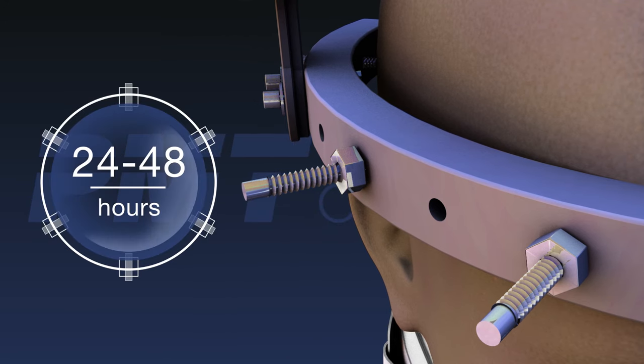Insensate and particularly thin patients benefit from additional padding around the anterior and posterior bony prominences. Patients often experience muscle wasting while in a halo and may require tightening or even exchange of their vest to a smaller size. Moisture Wicking Coolmax and acrylic liners are also available, as some patients may not tolerate lambswool.